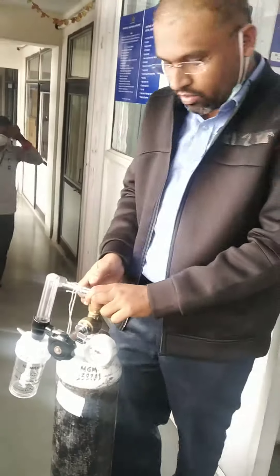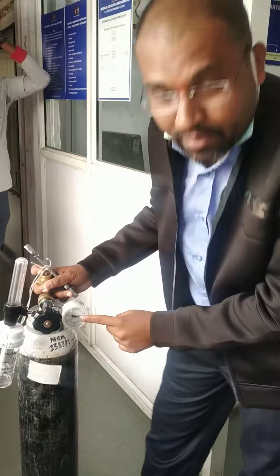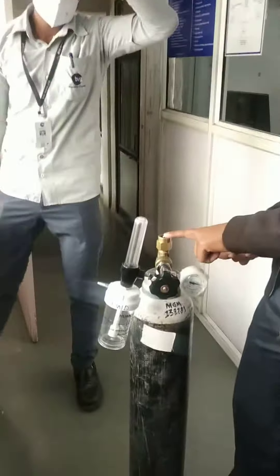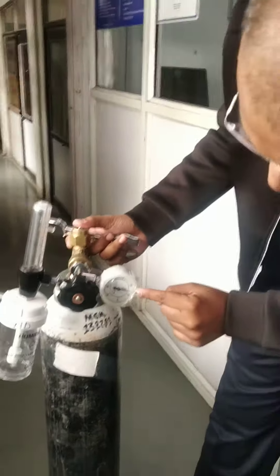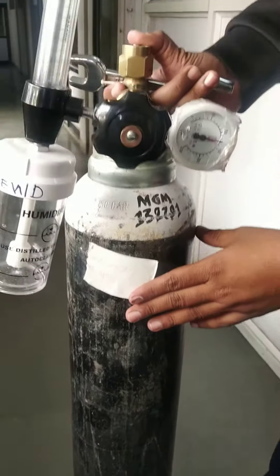You can close this side. Here you can see the cylinder is inside and empty when closed. When open, here you can see the pressure — that means the cylinder is a filled one.